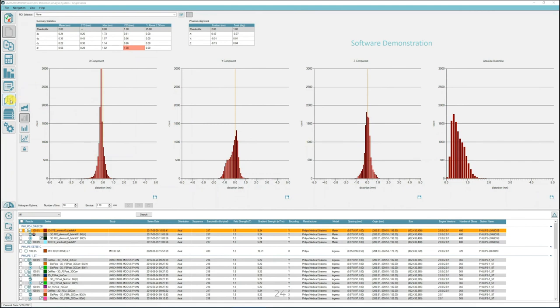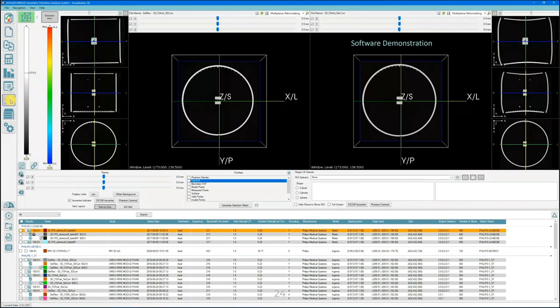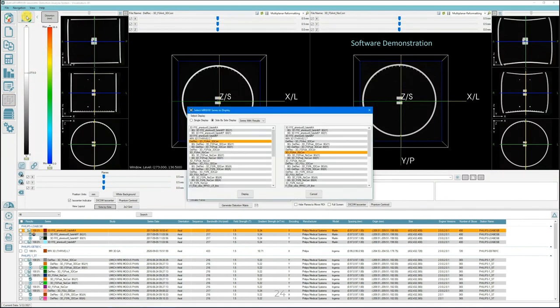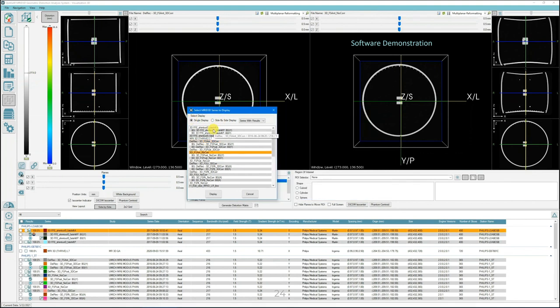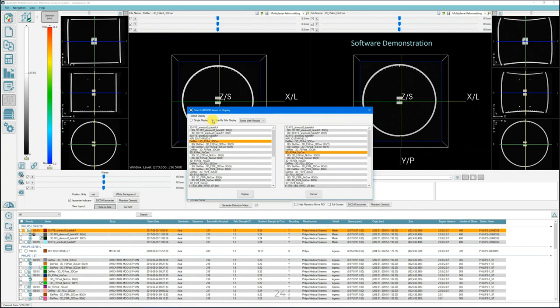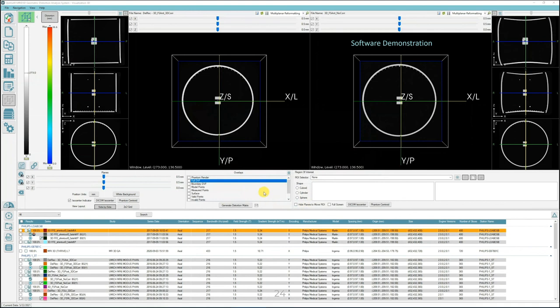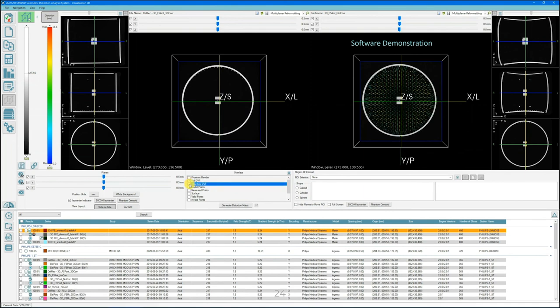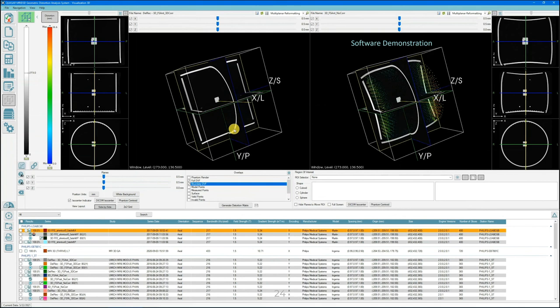The full 3D distortion vector field of any series can be viewed in the integrated MRID 3D DICOM viewer by simply clicking on the 3D visualization icon and selecting the desired series. A single series may be selected for further investigation, or two series for side-by-side comparison. There are several overlays to choose from depending on the statistics and information required. The full phantom internal DVF and the boundary DVF can be displayed. In this case, we have two series acquired on the same scanner, with and without vendor distortion correction, and we can see the difference in the two.